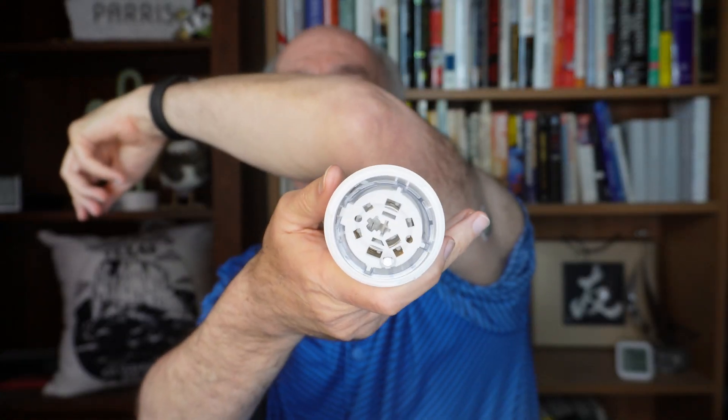I believe I have applied it. There's a thing on there. I don't see blood pouring out — that's good. Now it hurts a little. I'm going to press this to make sure the outer sticker is going to stay on the skin, because this has got to be waterproof. I've got to shower — I can't go 15 days without showering. Press and hold the center part for 10 seconds. No lights or anything here. We've got a whole computer laboratory going on in that little thing, and then it's disposable — that's a hard thing to believe. When it's done, it's disposable and you just put another one on.